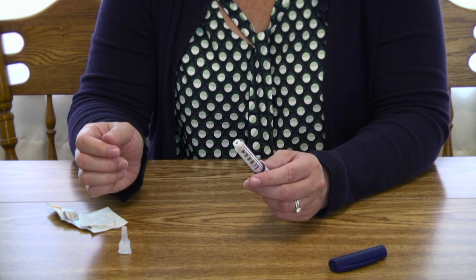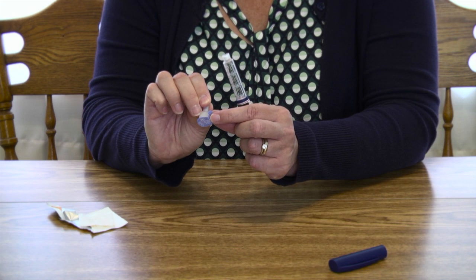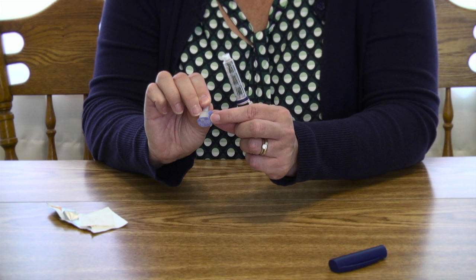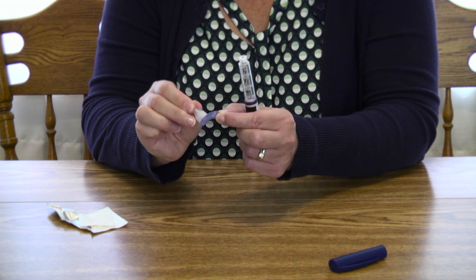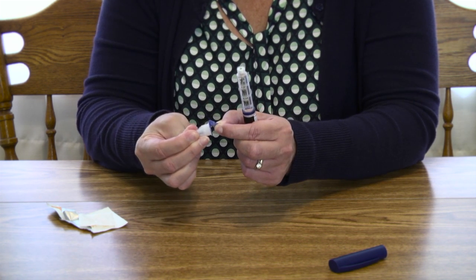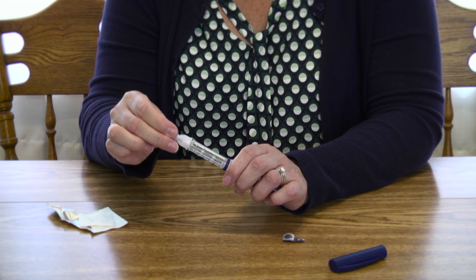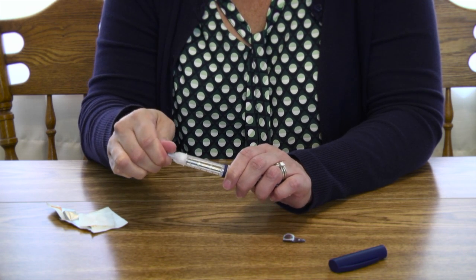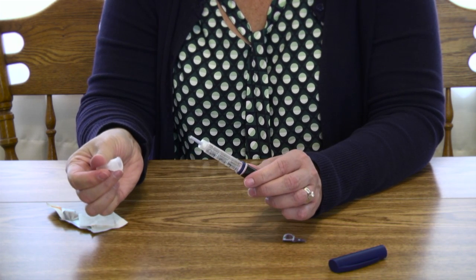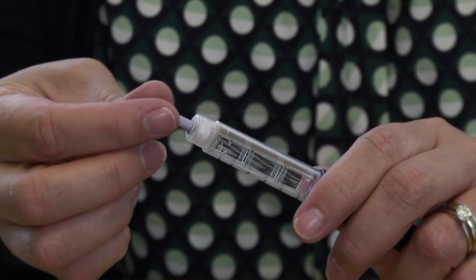Attach a new pen needle onto the insulin pen. Pen needles come in different sizes — talk to your health care provider to choose the pen needle that is best for you. To attach the pen needle, pull the paper tab off the pen needle, then screw the new needle onto the pen. Remove the outer cap of the needle — you will need the outer cap to remove the needle from the pen when you are done with the injection. Then remove the inner cap.